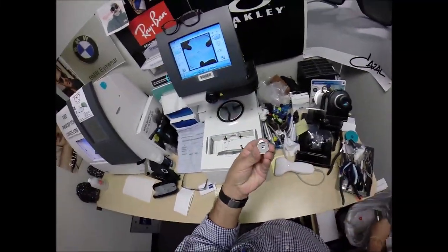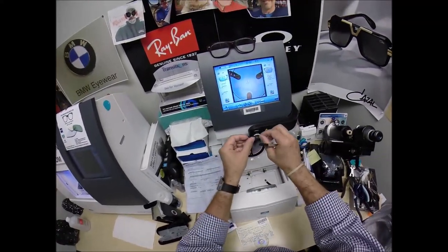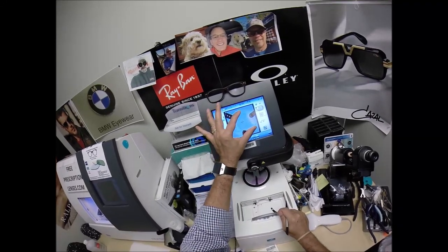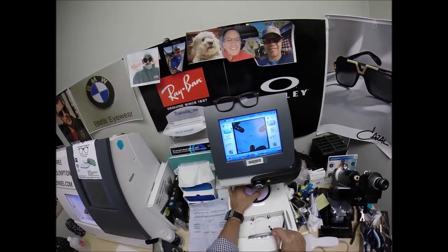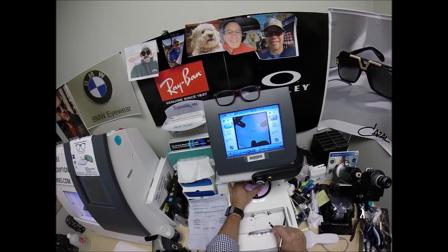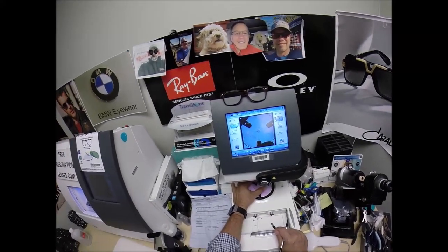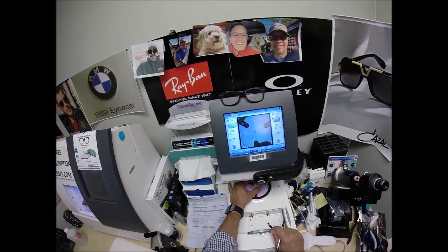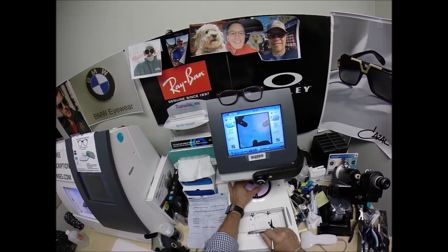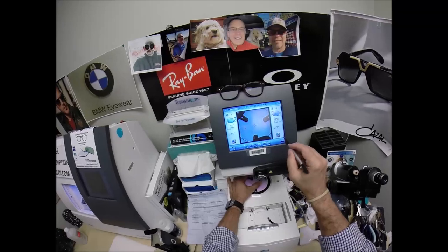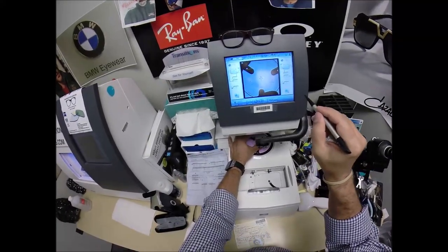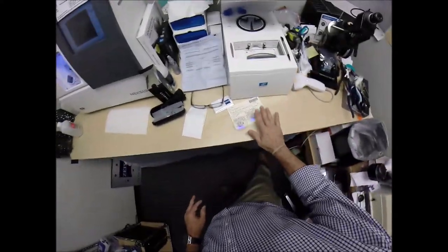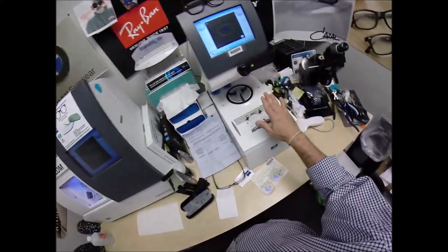We're going to do the same thing now for the left lens. Pull the paper away to make the black side sticky. Line up the silver button there. Same pupillary distance. Same way of me just squeezing out an extra half millimeter by moving it over in the box. Get everything laid out as such. Same PD. Same optical center height. The seg height. The position of wear where the progressive will be when you are wearing it. Always like to make sure the lens is large enough to fit, and it will. Hit that button. Now the block goes on the left lens.